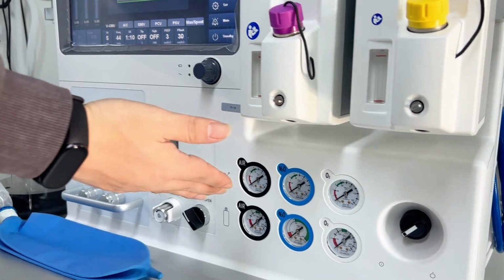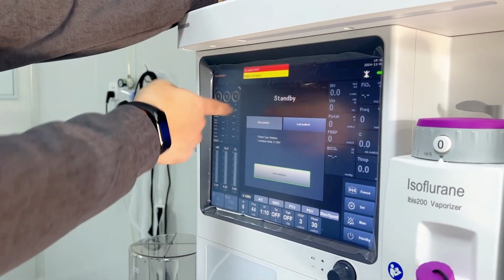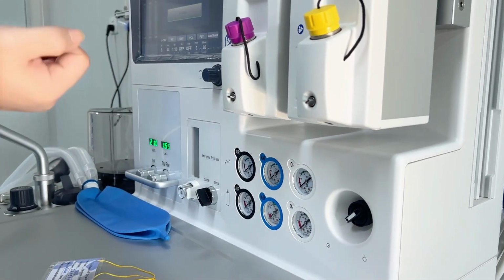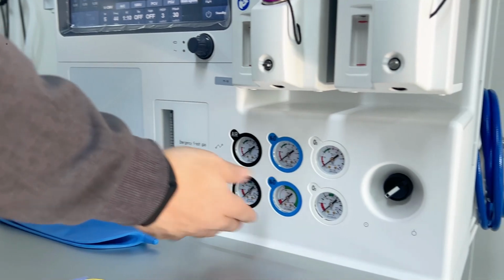Here are the pressure gauges. And I mentioned to you by here on the screen, we have the electric pressure gauge to show the parameters very accurately and directly. But at the same time also, here we have the mechanical one. It's also to prevent problems if the machine has any problem without the electricity or something, then we can still check it by here. And why we have two columns, here we can see.